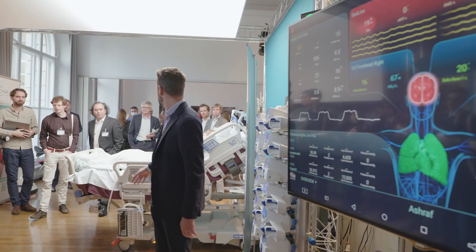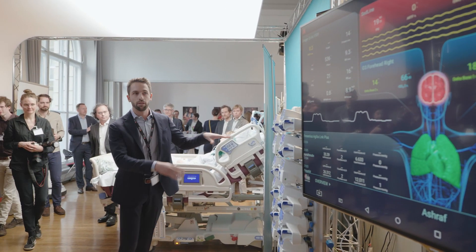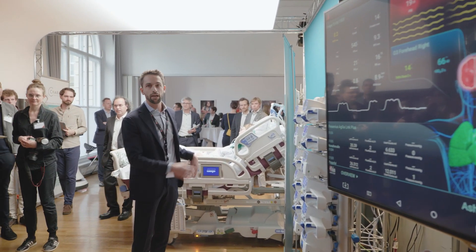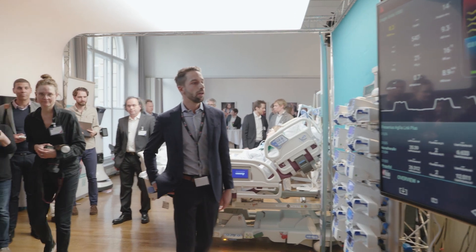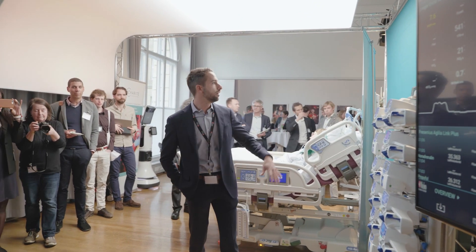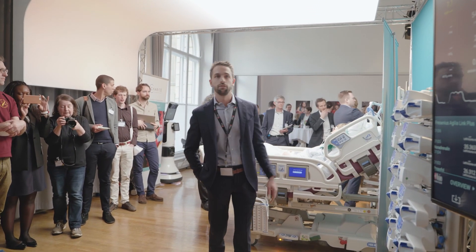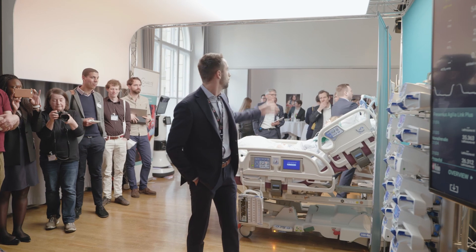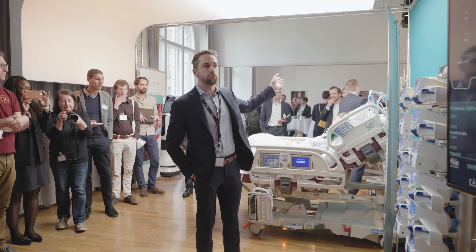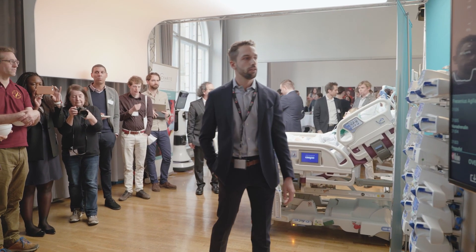Basically, here in this ICU we have many different pieces of equipment that are all connected together. We have the Fresenius pumps over here, we have a Draeger ventilator over there, and we have a root monitor next to the patient.